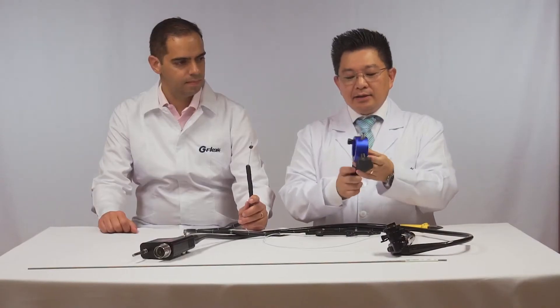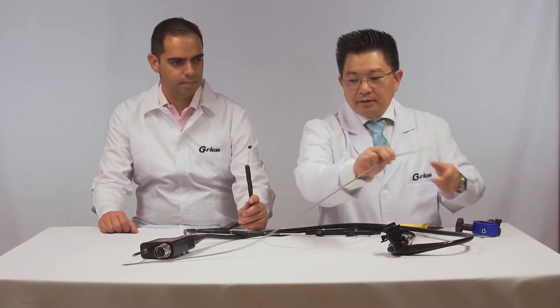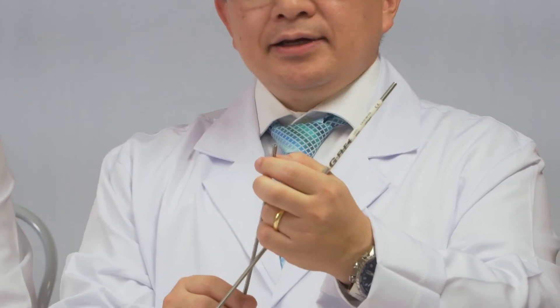It's a handle for emergency lithotripsy and a coiled sheath. It works outside the duodenoscope, it's not a TTS system.